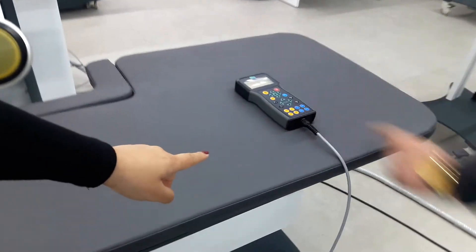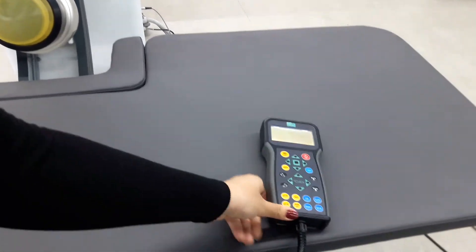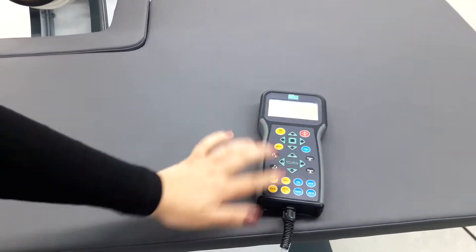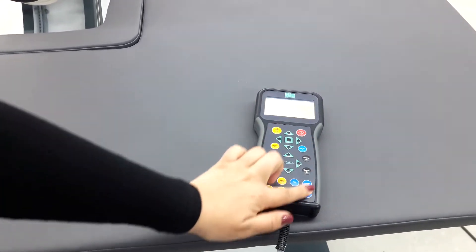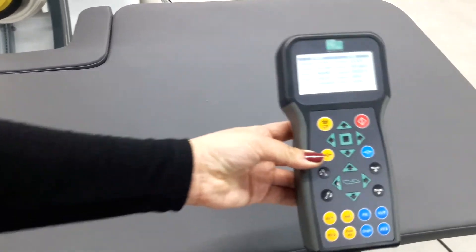As you can see, Spark EM has this remote control. The left side is for X-ray and the right side is for controlling all other functions for ESWL. This remote control can be used far away from the device.